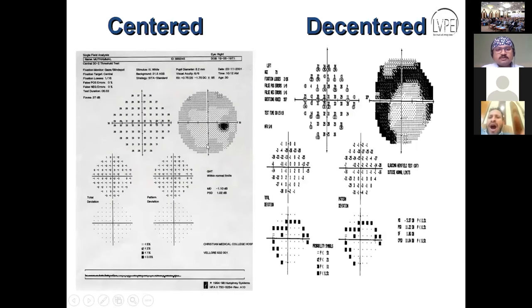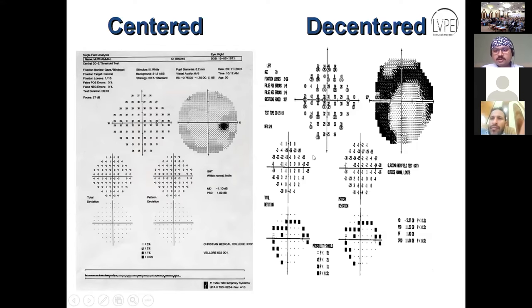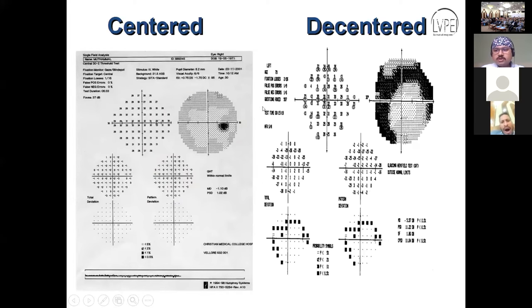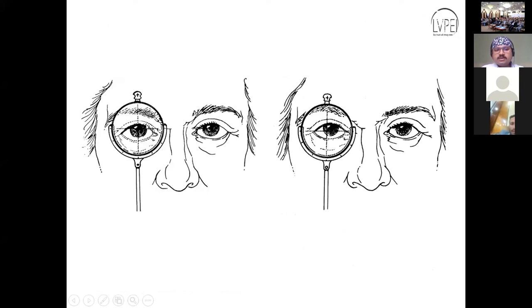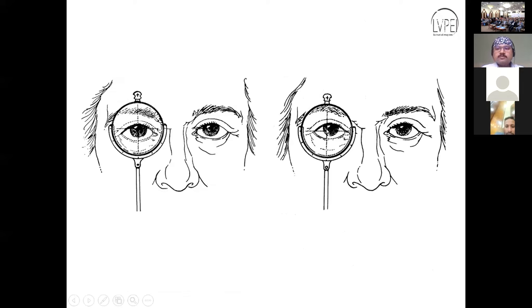On the left side you see a normal field, whereas on the right side there is an arcuate defect. This is caused by the lens used while performing the test. When the lens is centered, the overall field vision is good; if the lens is decentered, we find such a defect. The trial lens must be through the center of the pupil and must not be misaligned — this is very important for the perimetrist or technicians performing the test.